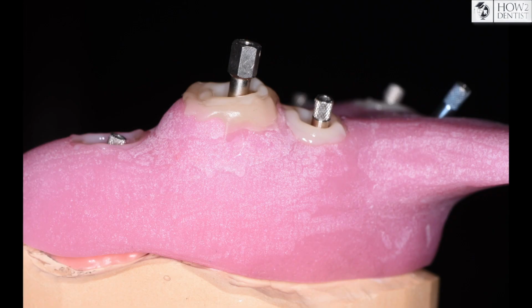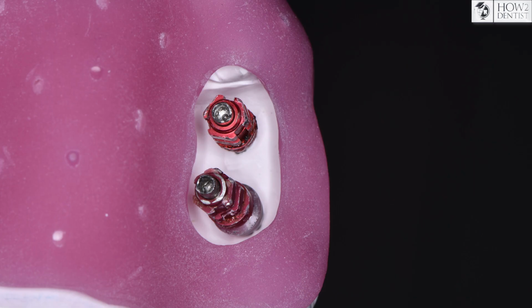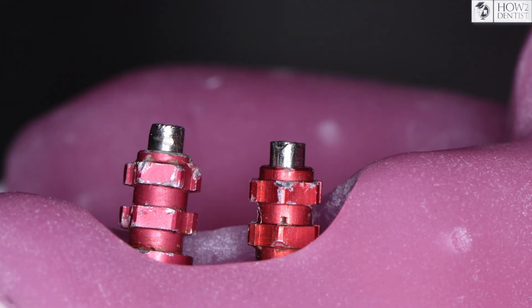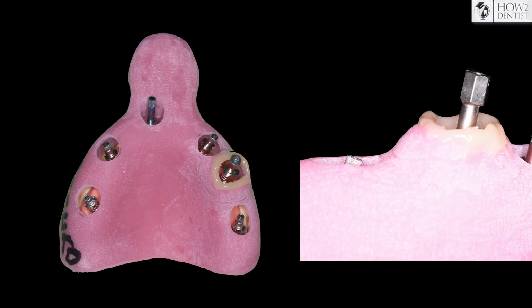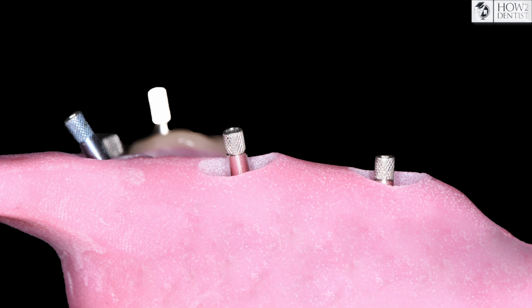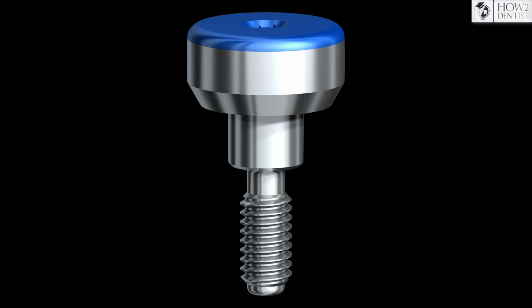The retention part of the transfer must be located inside the tray, and only the fixing pin should protrude above it. In cases where technicians see only healing abutments in the initial impression, errors may occur with the exit of the transfer and with a lack of space for it. Nevertheless, if such work is sent to the laboratory, the technician should be attentive to the intended implant access and know the height of the transfer. The clue is given by the healing cup.